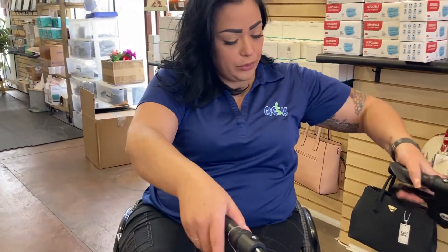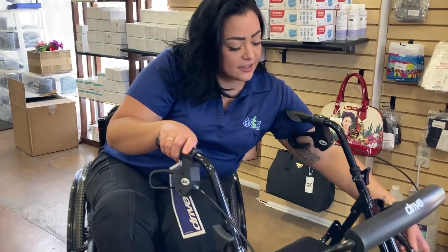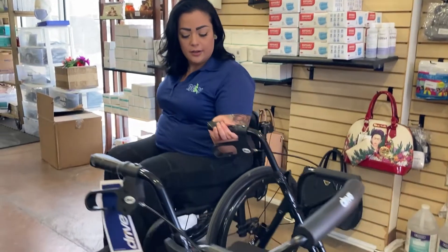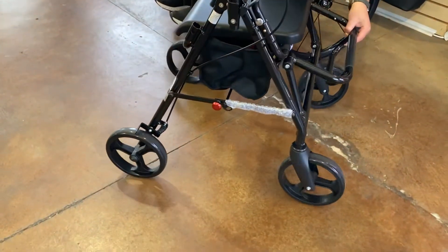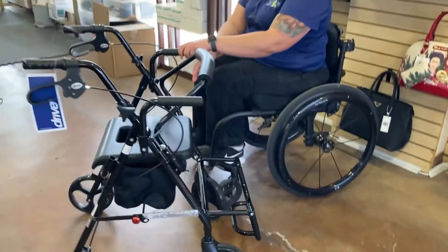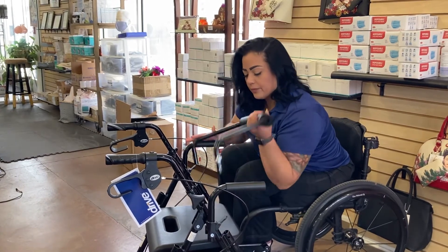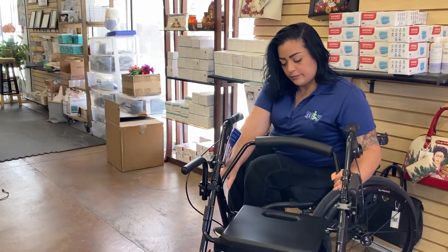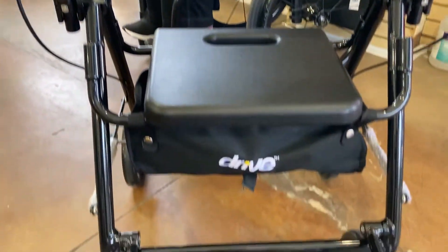You're going to have the same brakes, seat, and bag — everything. But this one has a little more: it has armrests that will come up when you're ready to use it. The foot plate comes out from right here, so it's hiding. The back will come off and you'll put it over here. It takes a little workout, but it's a little fancier because nobody will know that it's actually a transport chair one. And the person will push you from up here.